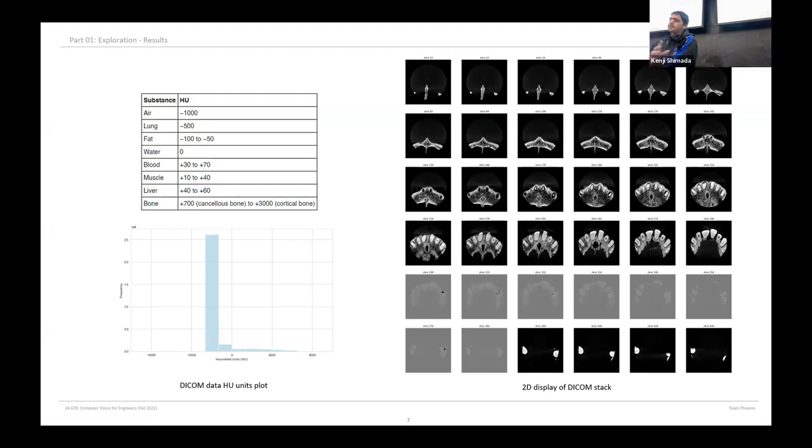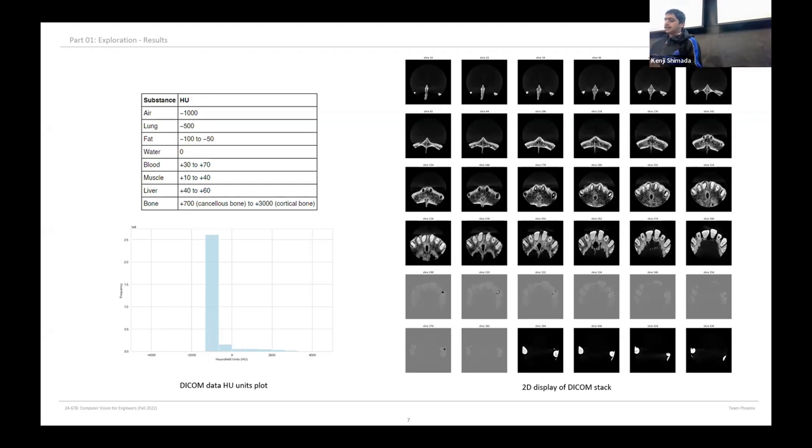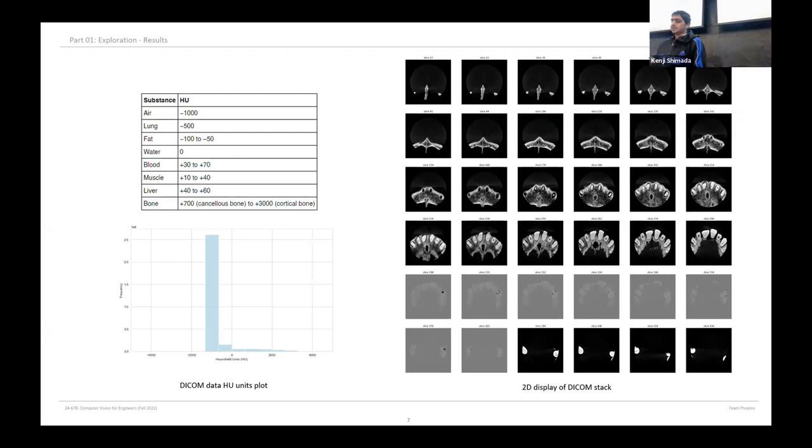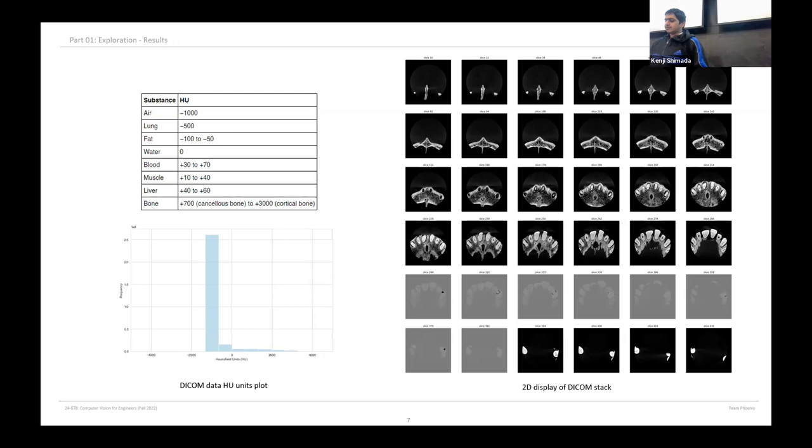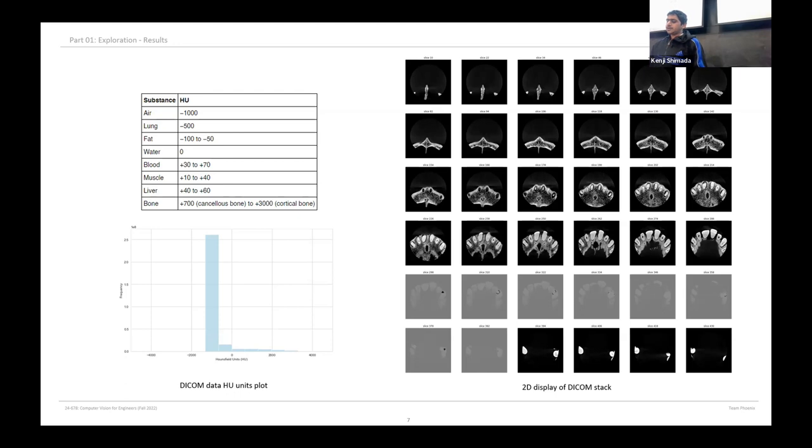We use the library within Python called PyDICOM to help us read the files in DICOM format. We then start reading the files from layer number 10 in the first subplot. Then we have sampled every 12th layer from the DICOM data stack in order to generate the stack of resulting DICOM images. This way you can see how we tend to get more useful information after every iteration of the segmentation.